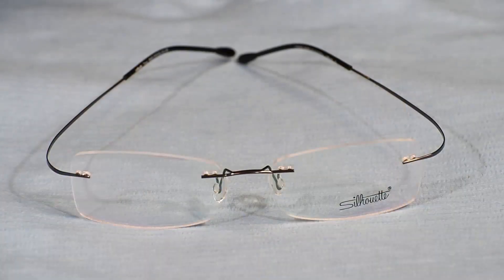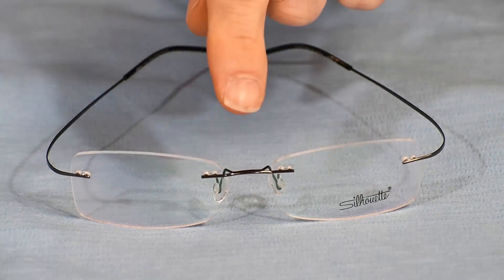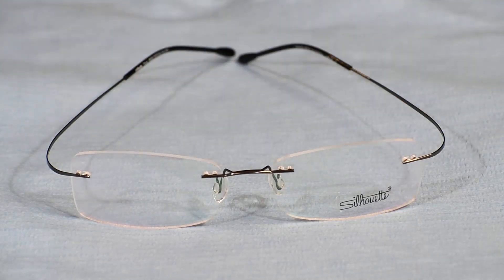Here's what your frame will look like when it's together. It's often referred to as a three-piece drill mount — you'll have part one, two, and three. But to help determine where yours is broken, let's look at a frame while it's apart and go over it piece by piece.